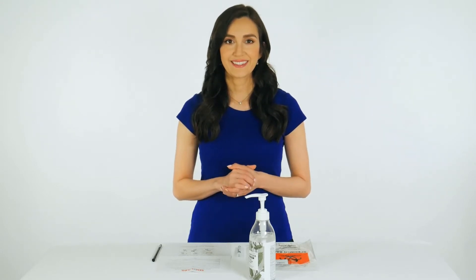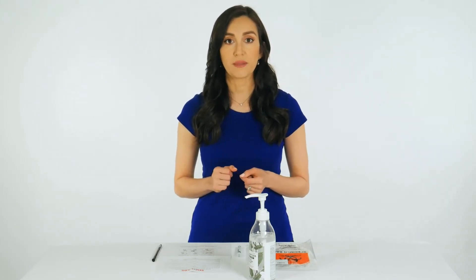Hello, today we will walk you through collecting your sample for your SDI Labs throat swab specimen collection kit. SDI has worked to simplify specimen collection for our patients using these swabs. The specimen collection kit is simple, straightforward, and easy to use without compromising on turnaround time or accuracy.